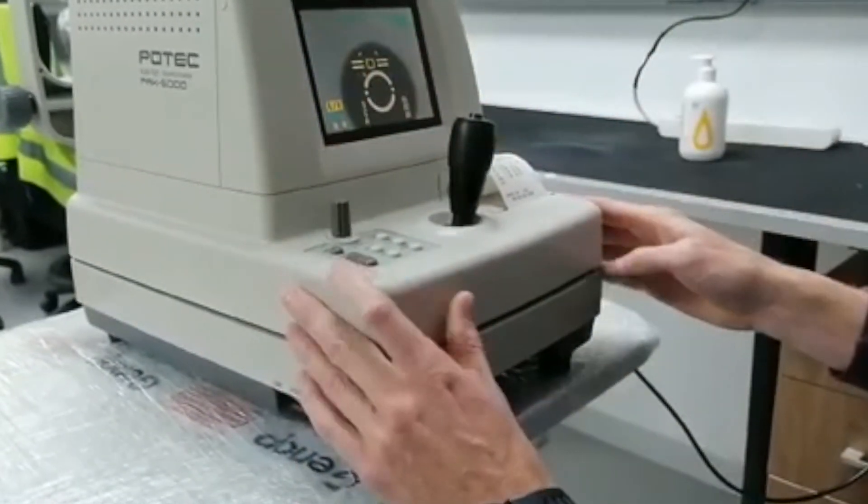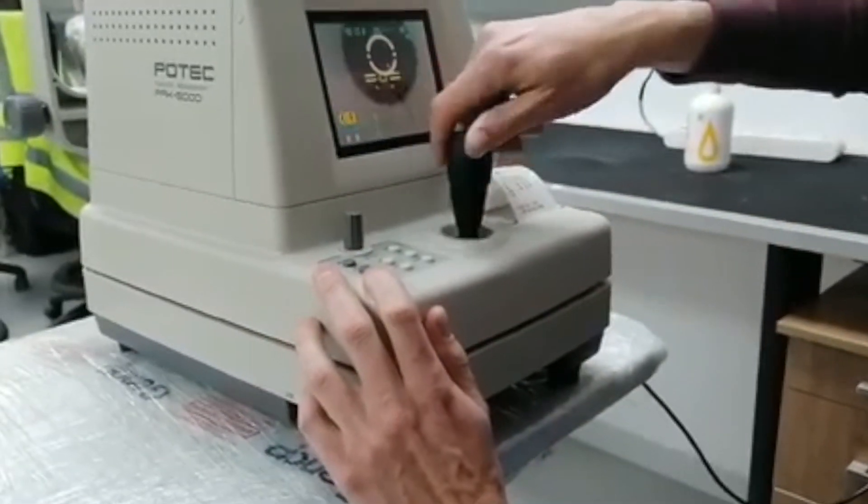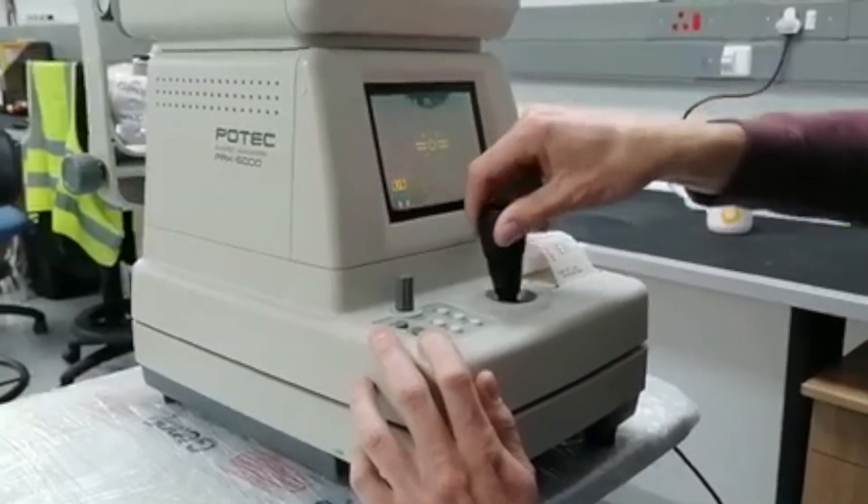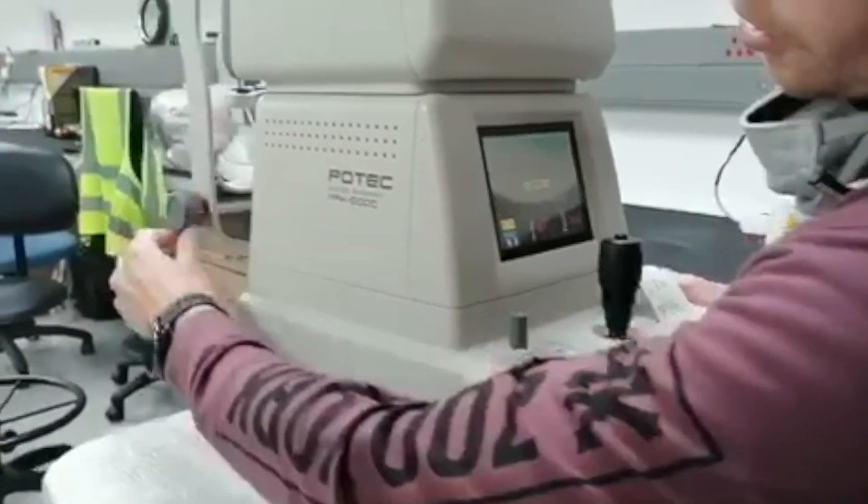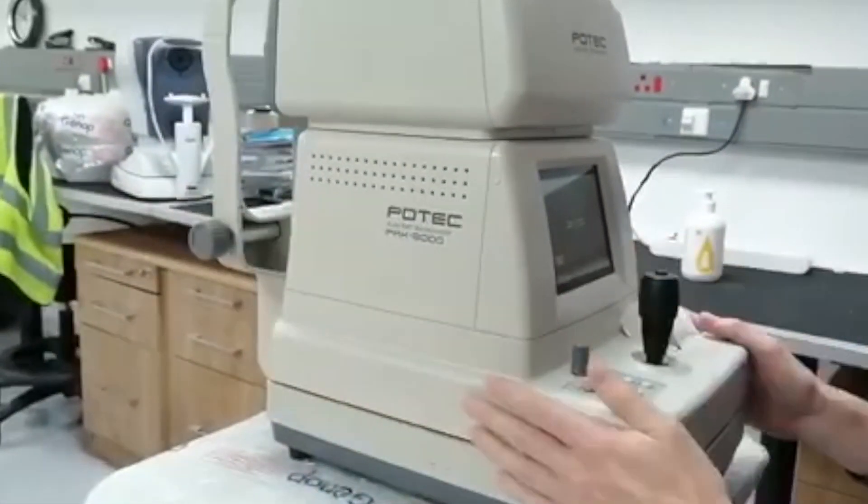Leave this one alone completely. You'll see now you can't move it anywhere and then take the head all the way down, just like that. Don't force it or you will break the joystick. Just take the chin rest all the way down.